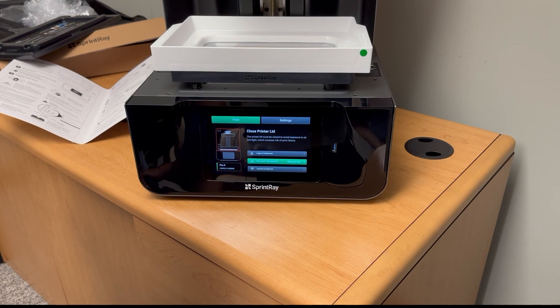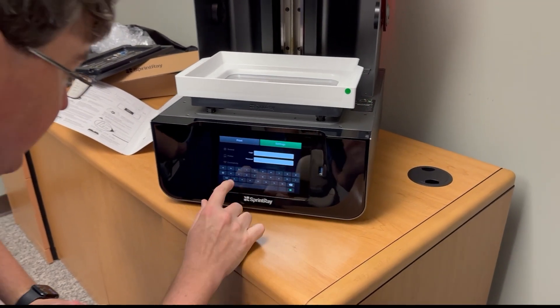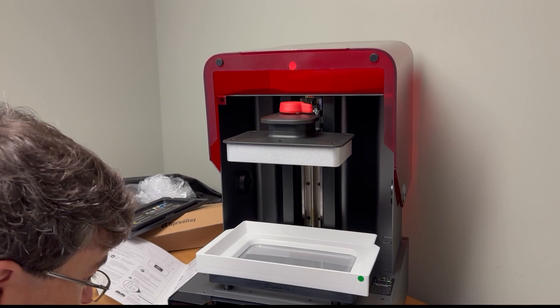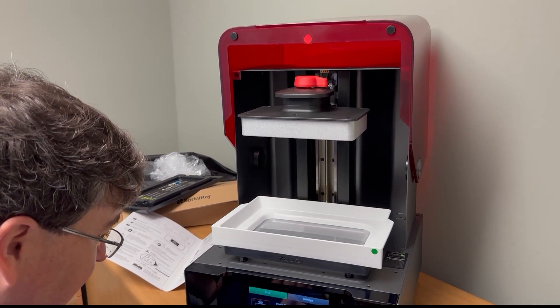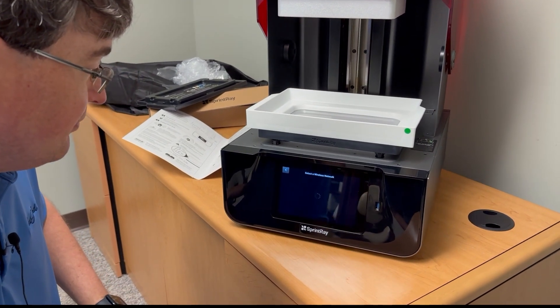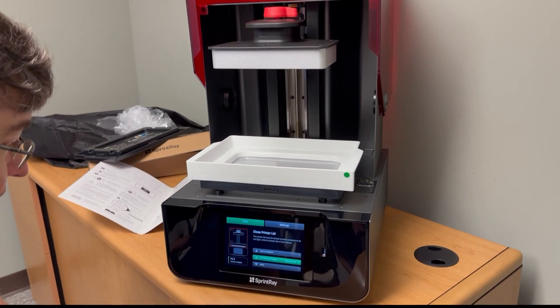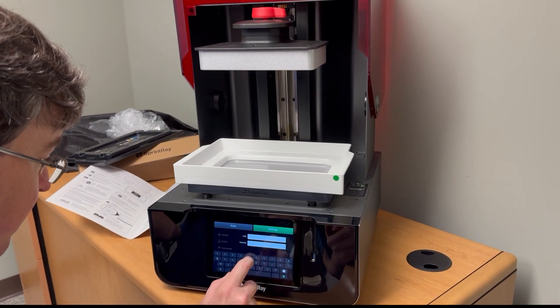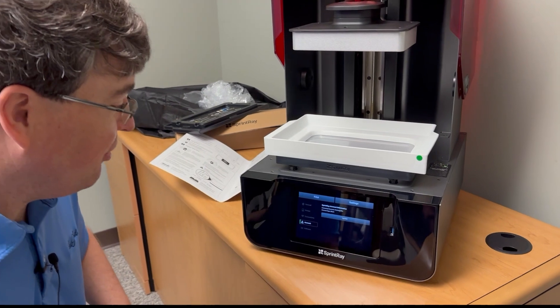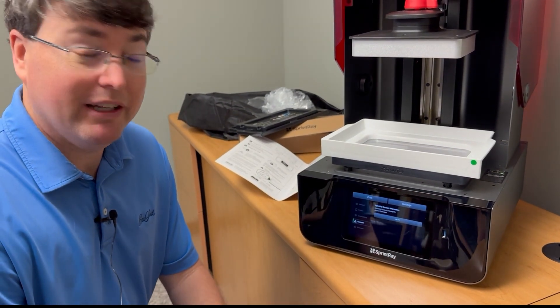On the screen we've got 'Log into Dashboard' — let's go ahead and try to do that. Can't log into the dashboard until we get on the Wi-Fi, so let's connect to the network. It let us in. Now let's log into the dashboard. It says 'Basic Account' — it always does that to us. We have a pro account, but it'll probably fix that. If you've got a pro account and it says basic in the beginning, don't be surprised.